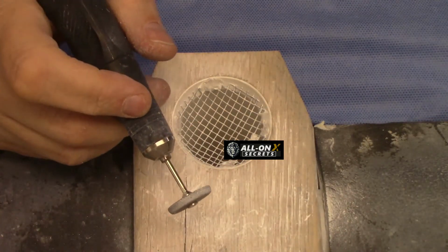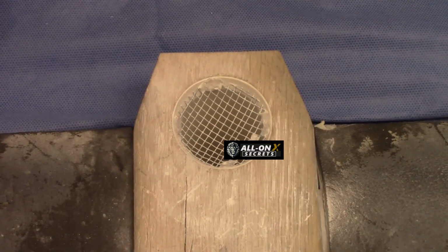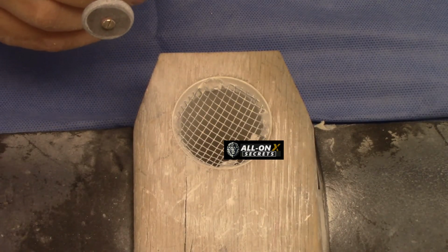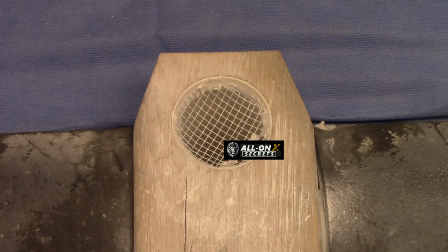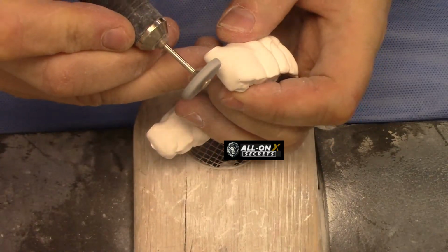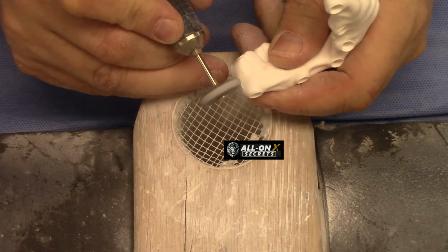So turn on our vacuum so that we don't suck in all the zirconia in our lungs. Probably really loud. Let me just turn this down a little bit. Okay. All right. So I'll talk a little louder. But all we need to do is come in and just remove these pieces here.